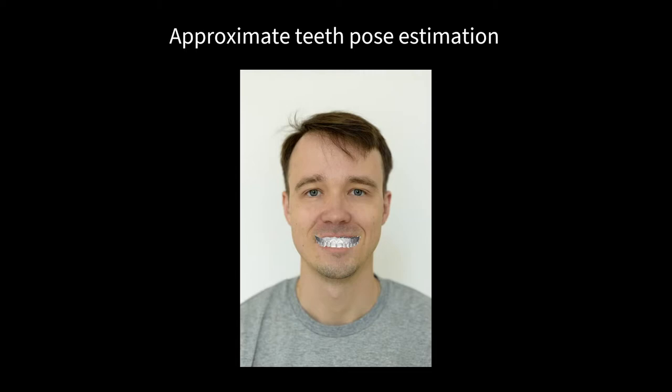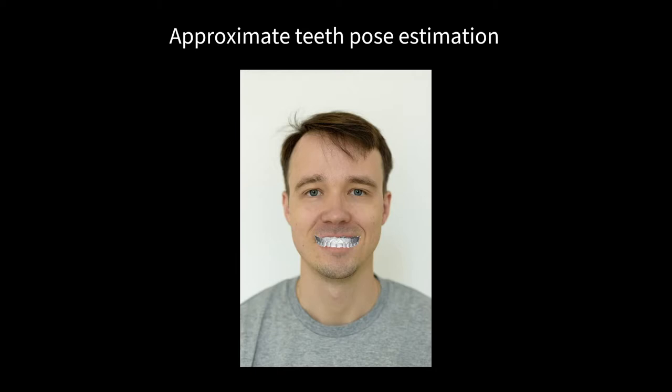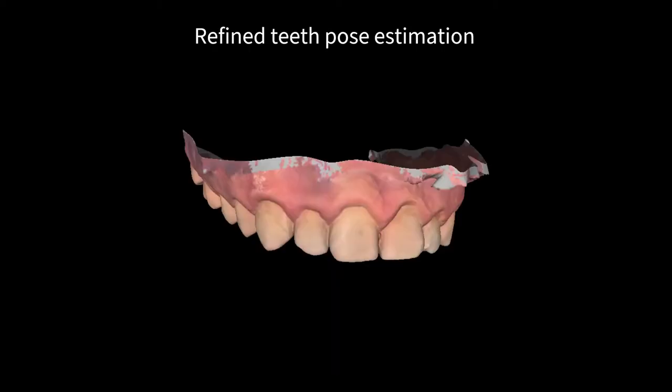The result of this step is a matrix that transforms the coordinates of the 3D head model to the coordinate system of the scene. Applying this transformation matrix to the denture model provides an initial estimation of the denture position, which is close to the position of the natural teeth of the patient.